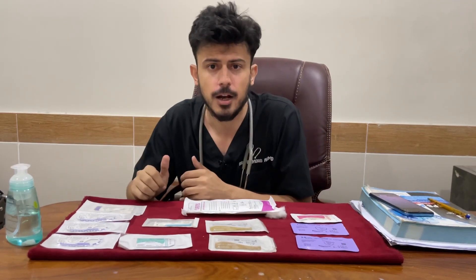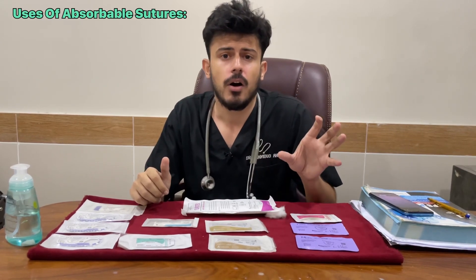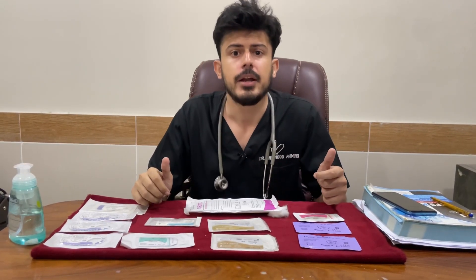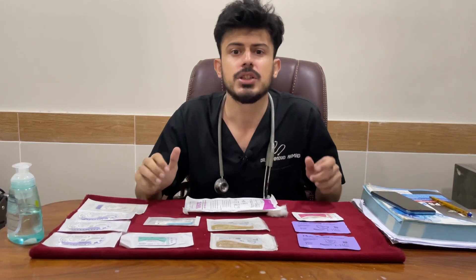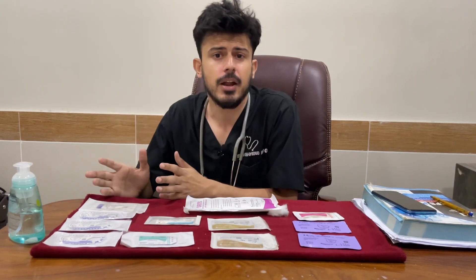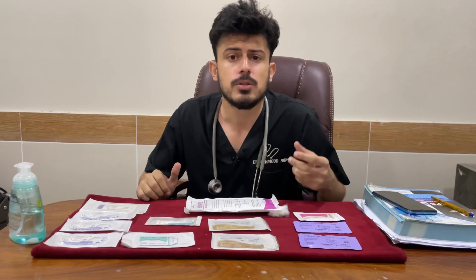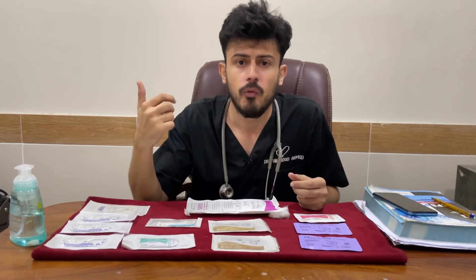The significance of absorbable suture is that it is usually used for subcutaneous repair, for intraoral mucosa, and for fascia which is not under tension. On the other hand, non-absorbable suture is mainly used for skin repair, vascular repair, and fascia which is under tension.